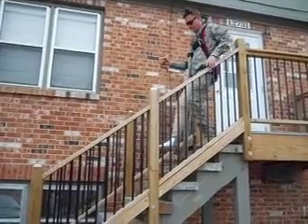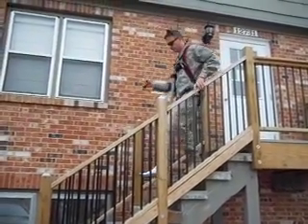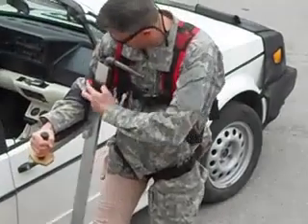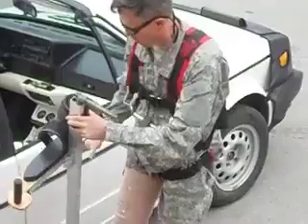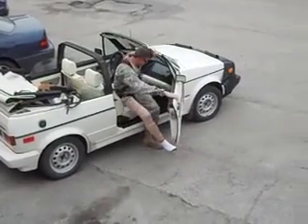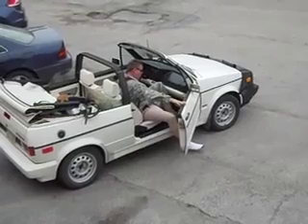Here you can see that your one hand is free. You're able to get up and down stairs a lot easier. To get into a vehicle, you just simply disconnect from the crutch and set it aside and just stay in the harness, and then you can get around and get back in that way.